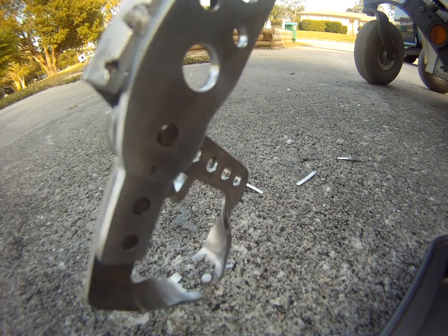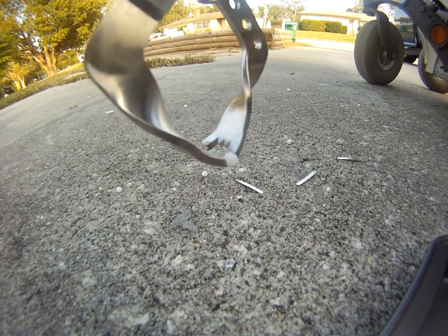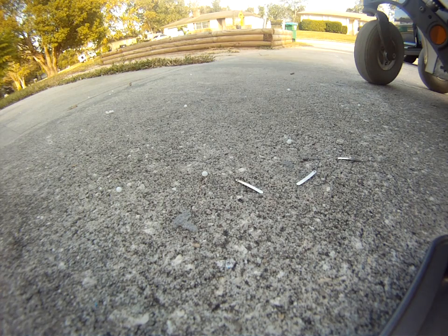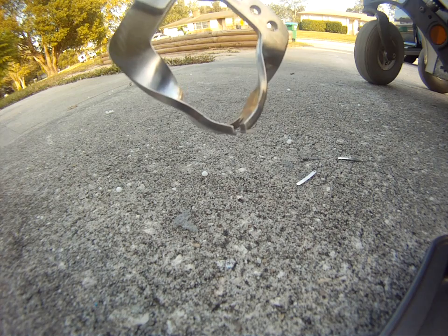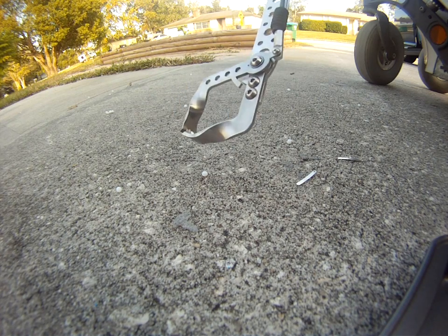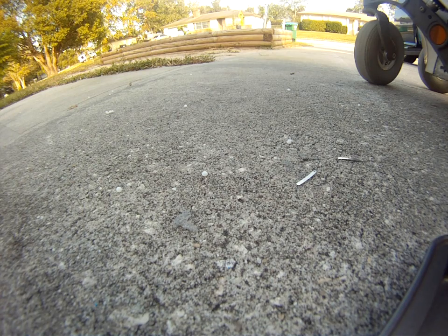The jaws were designed with precision and power in mind. With the greatest of ease you can pick up even the smallest of items — this is a paper-thin piece of metal, just about as thin as a piece of paper. I was able to easily grasp each piece individually, one at a time, without having to go back for a second try.